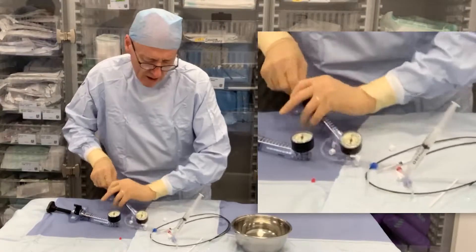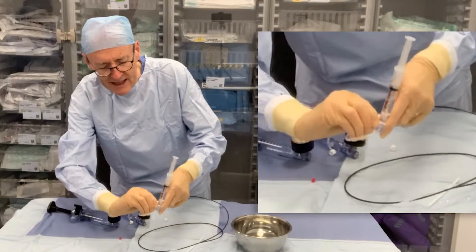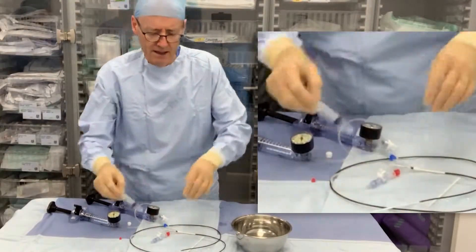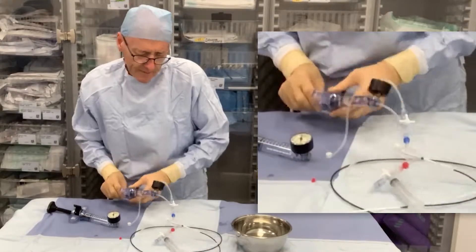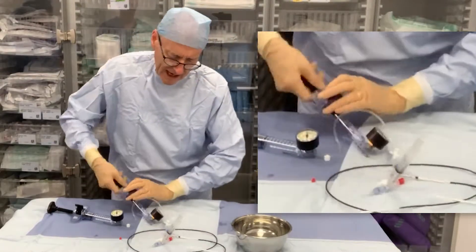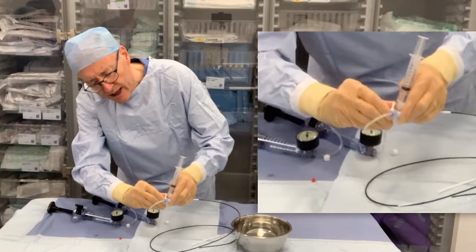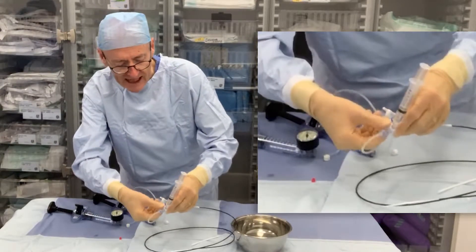Now we'll illustrate this a bit more — a bit more negative. And then if you watch carefully you'll see how much it should descend, but that wasn't as obvious as it often is. So again pull, pull negative. There you'd see how much — actually you would see it better there where the syringe descended as it took the dead space.